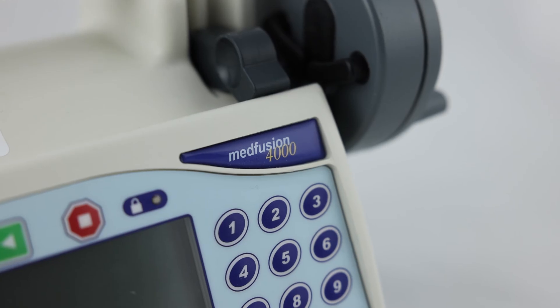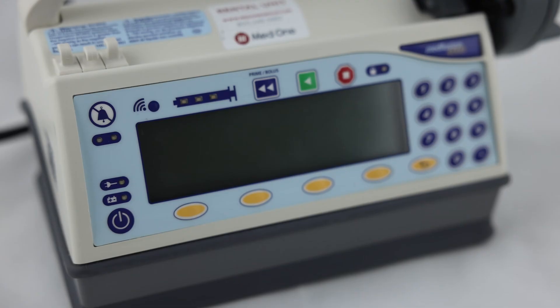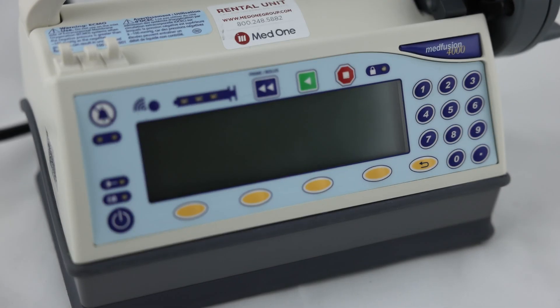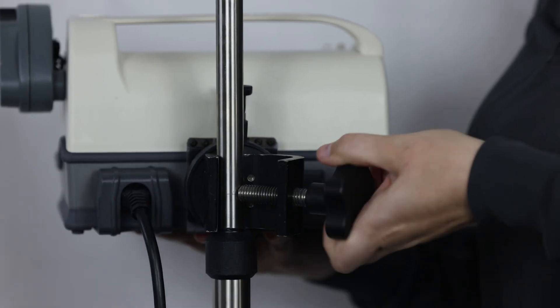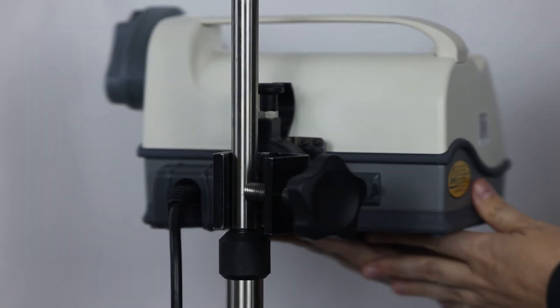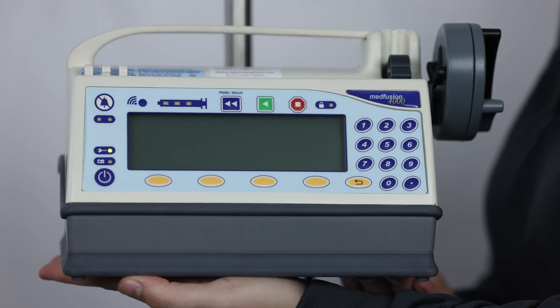ICU Medical manufactures the Medfusion 4000 syringe pump. It features a horizontal design, large screen, and numeric keypad. The Medfusion syringe pump is directly plugged into a wall outlet or has a battery life of up to 10 hours.